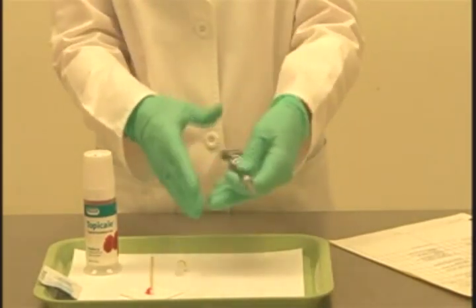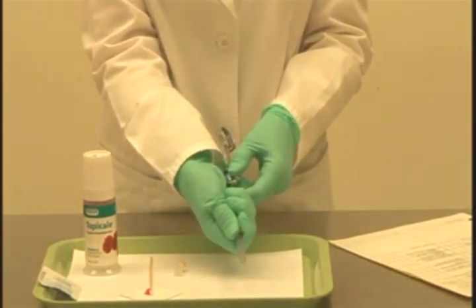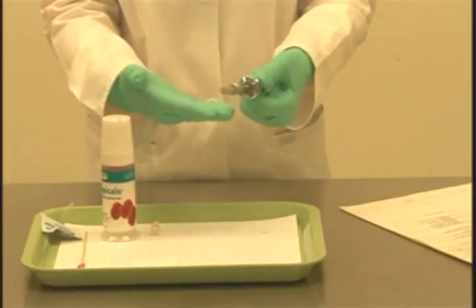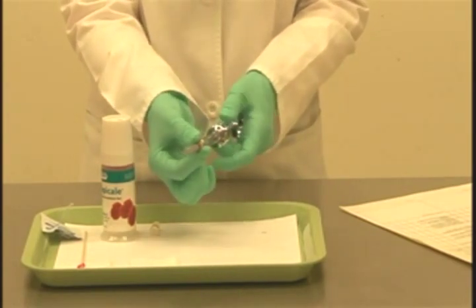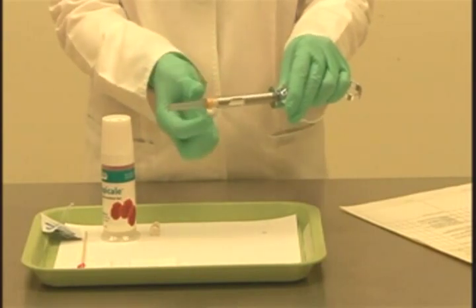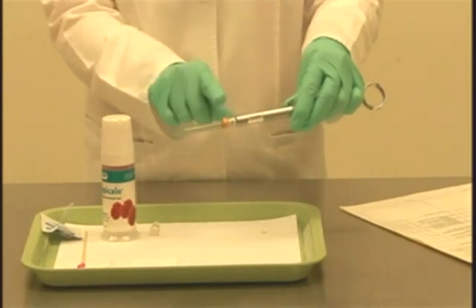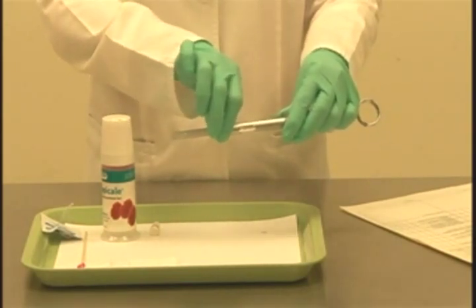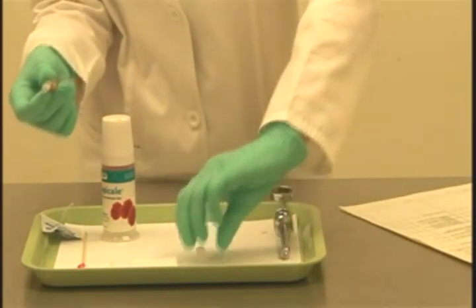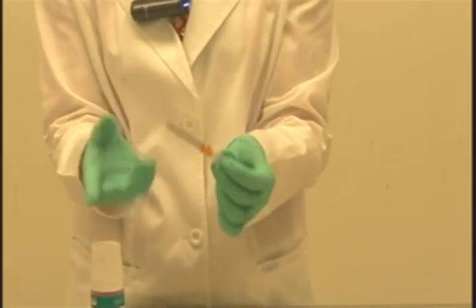I want to test the syringe before placing it in the static zone for the operator. Holding it in a palm grasp, I use my forefinger and thumb to gently wiggle the needle guard loose and allow it to drop on the tray. I'll use a one-hand scoop technique. Now for disassembly: we have a capped needle, so I need to remove the needle from the syringe. Be very careful at this point — we now have a contaminated needle. It's very important not to take off the needle guard. I hold this very firmly at the hub and remove it, keeping my hand well away from the needle end to protect myself. I loosen it from the syringe and, using my one-hand scoop, scoop the cartridge penetration end — and now I have recapped the needle using a one-hand scoop for both parts of the needle.